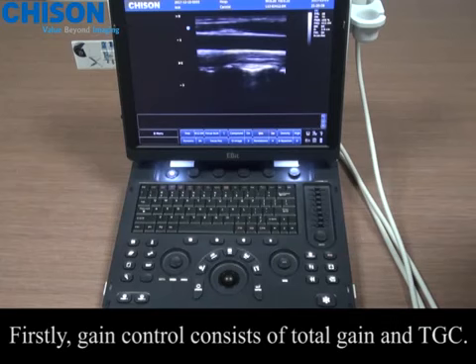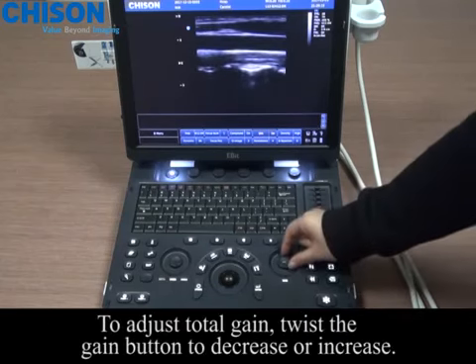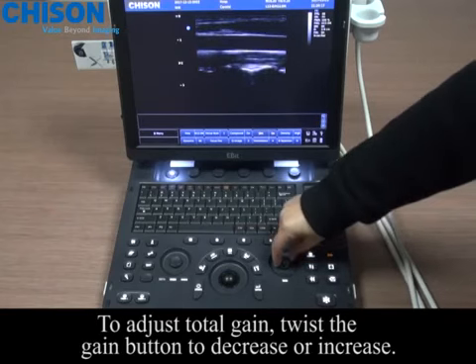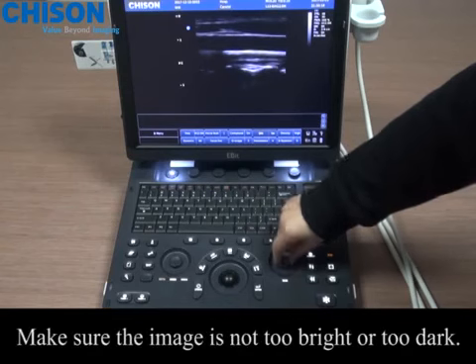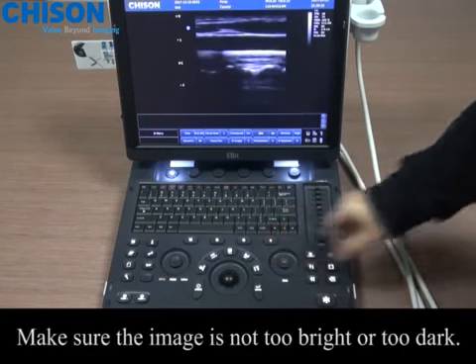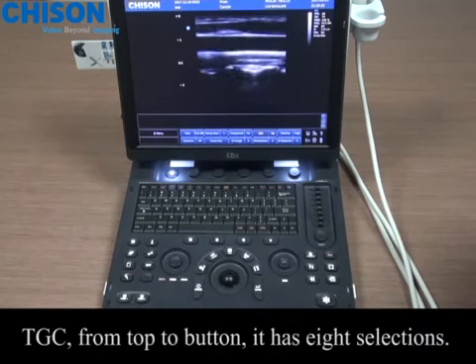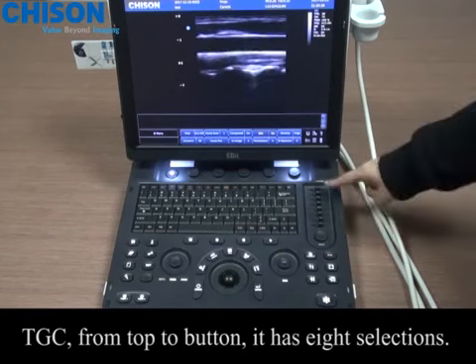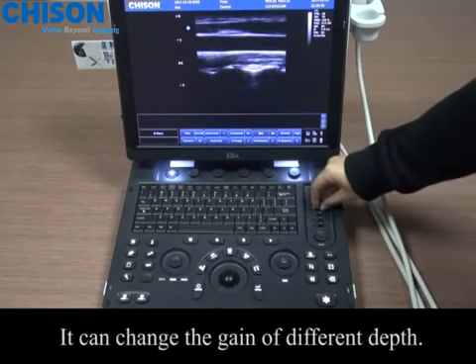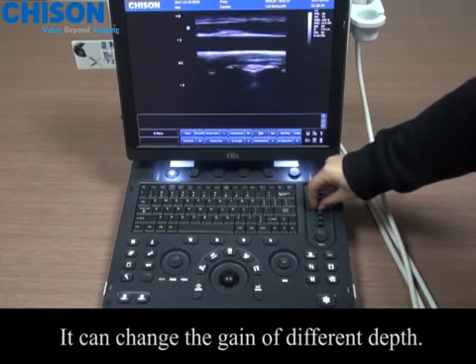Firstly, gain control consists of total gain and TGC. To adjust total gain, twist the gain button to decrease or increase. Make sure the image is not too bright or too dark. TGC, from top to bottom, has 8 selections. It can change the gain of different depth.